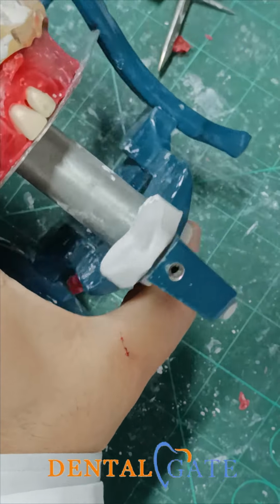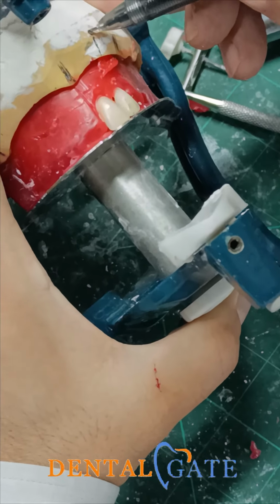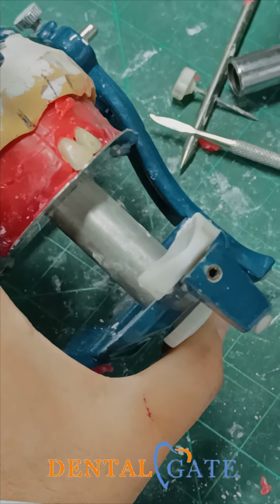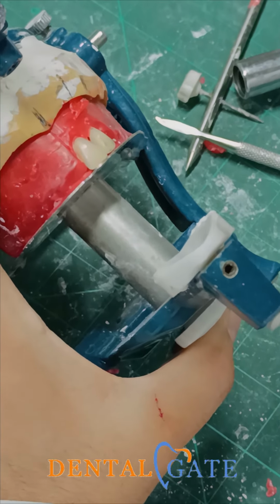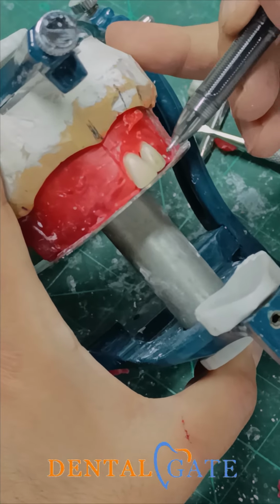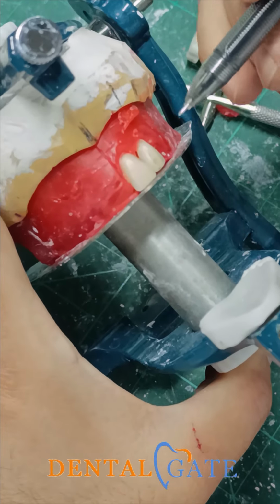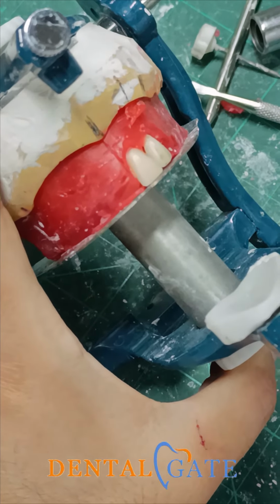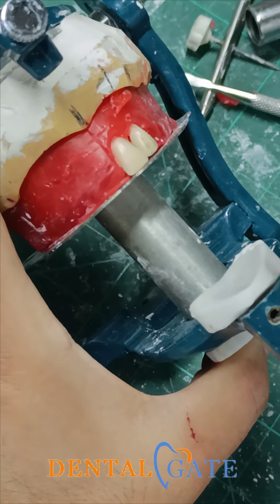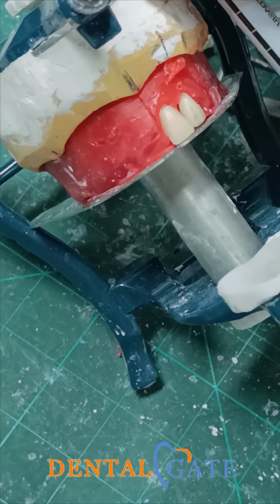So you can see my recommendation: don't make an inclination here now. Just make the other side and the lower if you need to add it for aesthetics. It does not impact any criteria for this rule. So just keep a space here. But generally, you can leave this space according to the case. If we have a class 3 case, or an old patient with parafunction, we don't care about this space. But now we will start with the standard criteria.